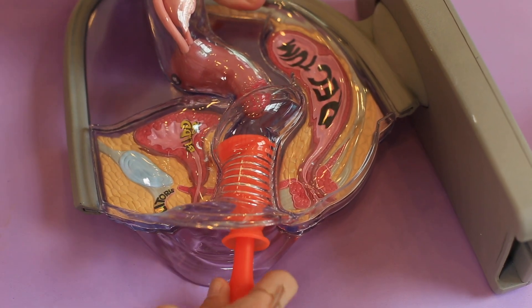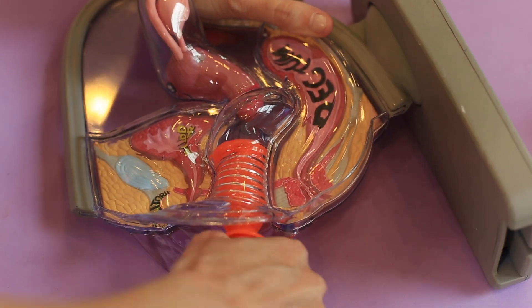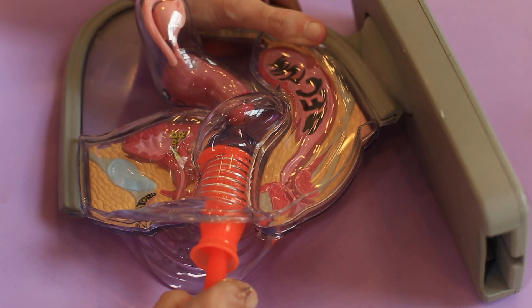I don't usually have suction issues with cups. I was worried about trying this cup — could this actually break the seal for people? Because sometimes cups just don't create that kind of seal for me. Once I got it in and turned it, it actually started cramping. I felt an intense shot of pain — I more so created a suction than letting it go. I tried whatever maneuver to move it slightly, and I could already tell this was not going well. There's no way to use this screw and slightly break the seal. It just doesn't work — it just does not do what it's supposed to.